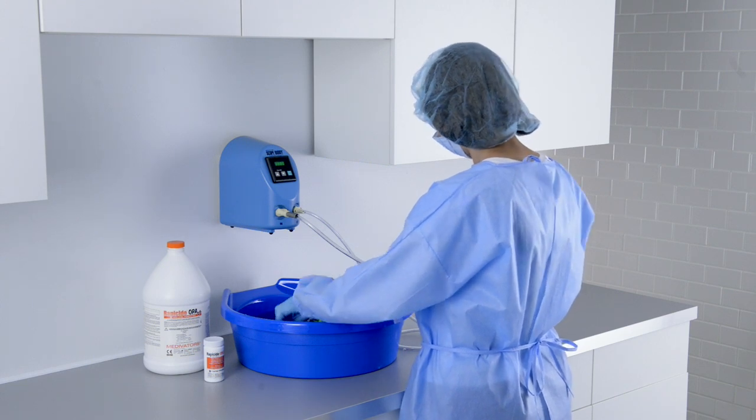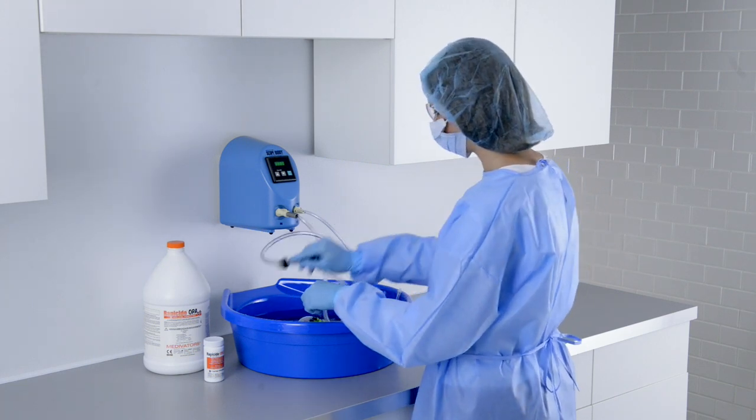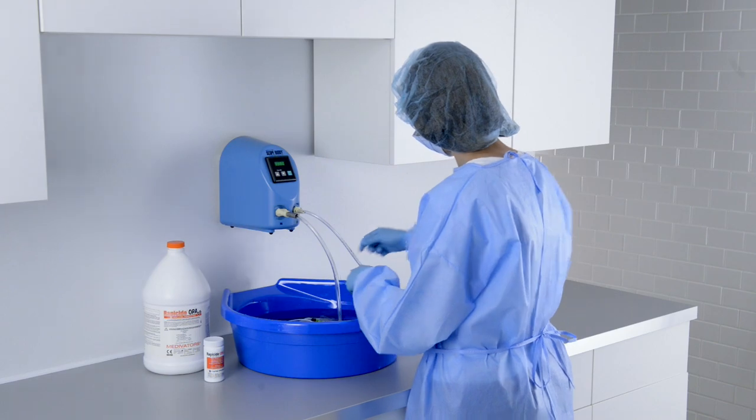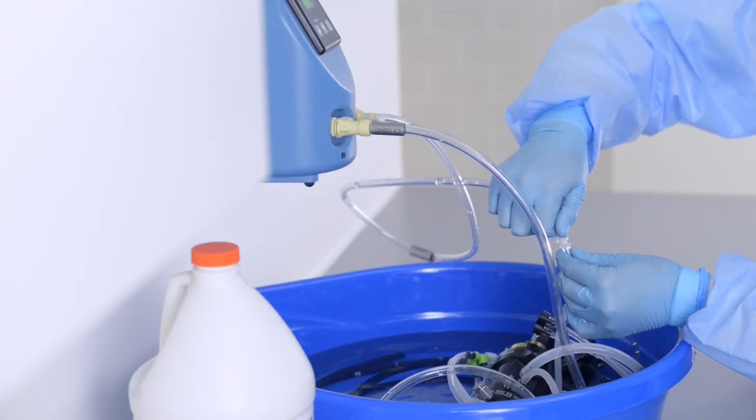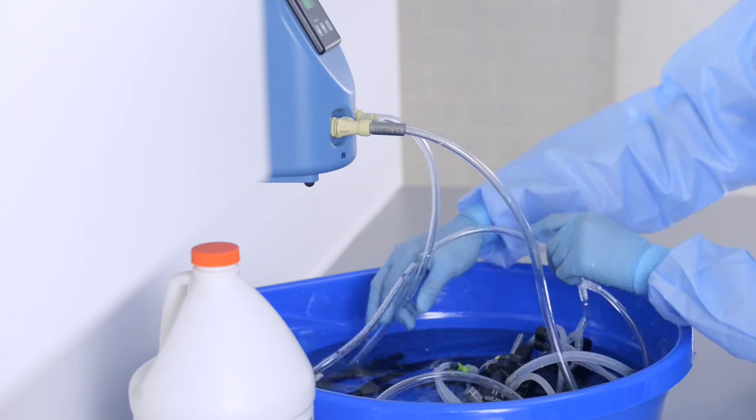Use ScopeBuddy endoscope flushing aid during manual high-level disinfection to provide constant recirculation of solution through all endoscope channels, reducing worker exposure to harmful chemicals.